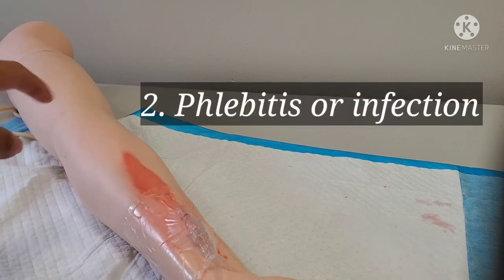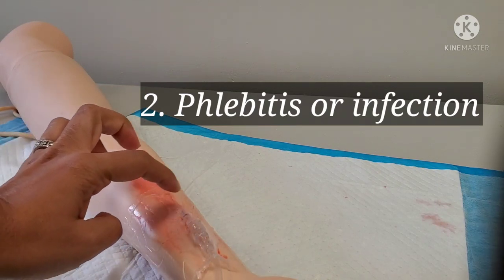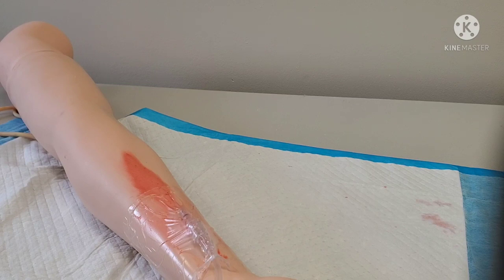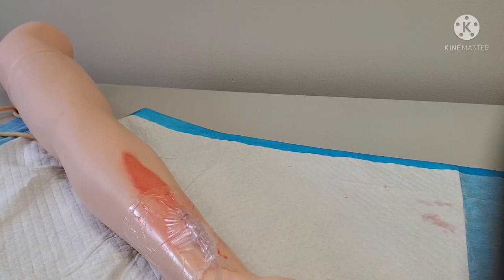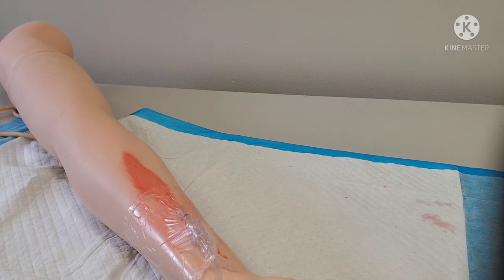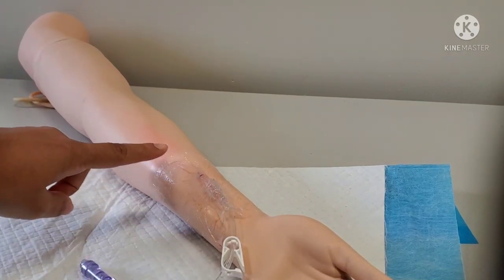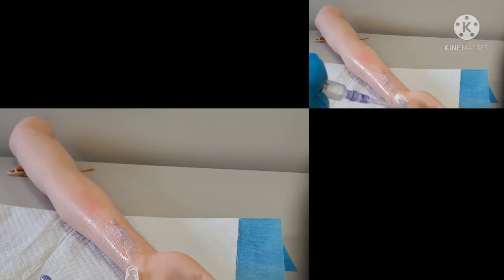Hopefully we would have identified this before it became this dramatic. Sometimes the site might just be red around the point of entry, or the whole IV site area might be red. What we do in this situation: remove the IV site, call the provider to come look at it, and the provider may order a warm compress and antibiotics if needed. This is an occurrence, so we need to write an incident report and document what we noticed and what we did. Anytime you notice any redness at the site, you want to assess further.